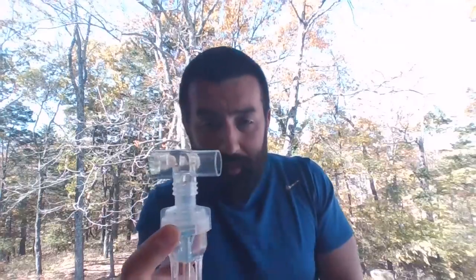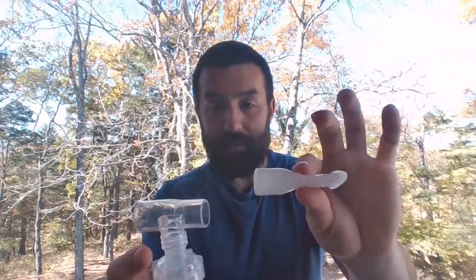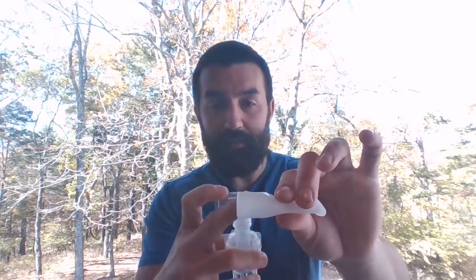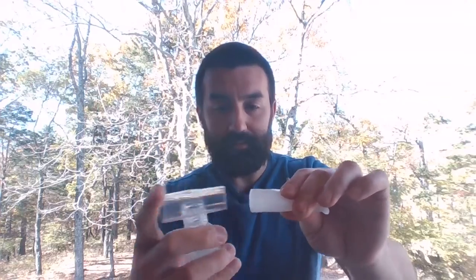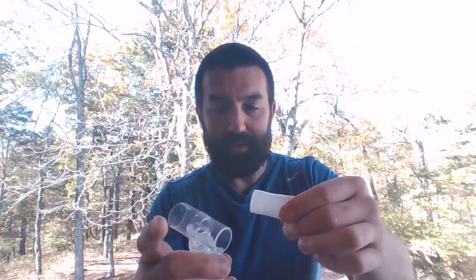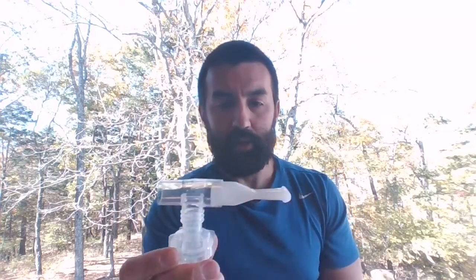So just to show you, I go ahead and have my medicine in here. I got my T-piece, all right. I'm dropping stuff here. Pardon me. Oh, I got a spare flex tube. So we're going to have a mouthpiece. These come in different little variants. Some of them have little ribs so it pops in and stays put. You can see the mouthpiece doesn't go in this side. Go ahead, push it in.